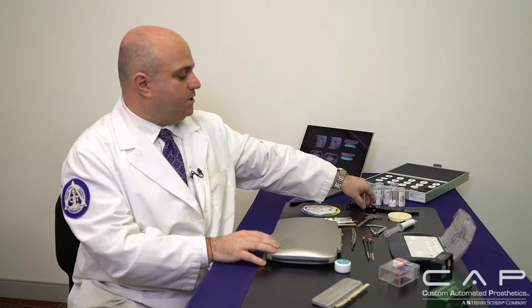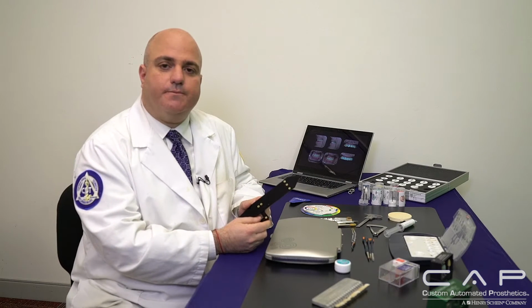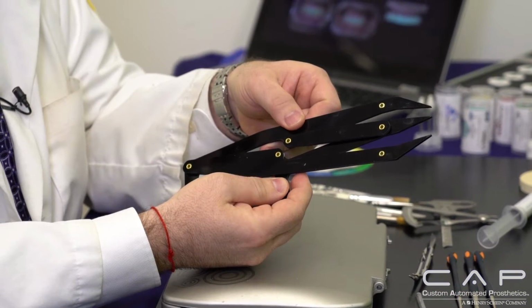So as I go through it, even though you can do all that in the digital world, I still go ahead and I measure it once it's milled and I'm ready to start layering or staining or anything like that. And I mentioned the golden rule of proportion, again, whether it's through wax ups or even digital. This is a Fibonacci gauge where I can see the exact golden rule of proportion.